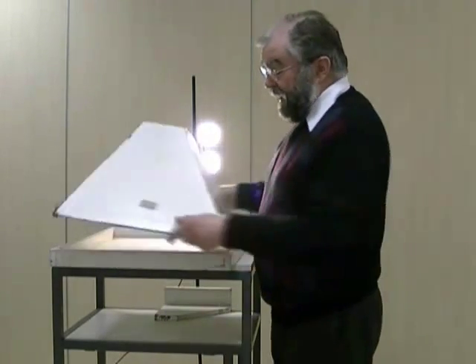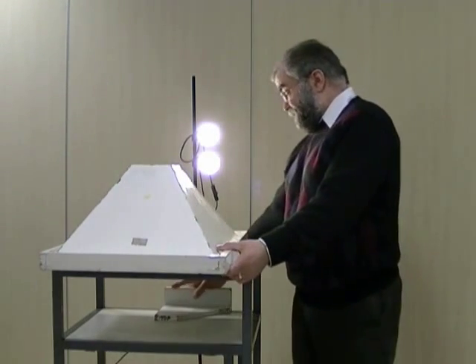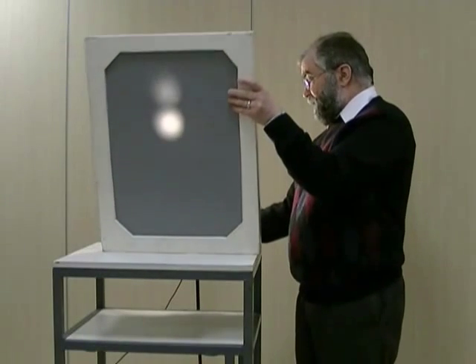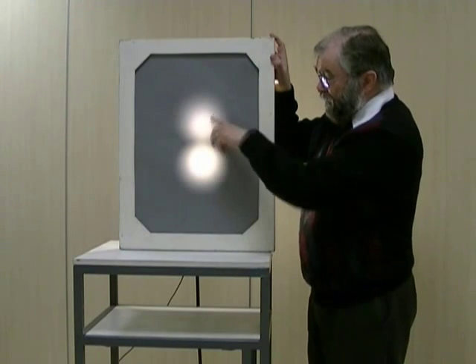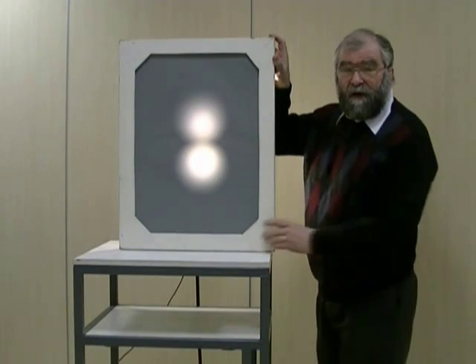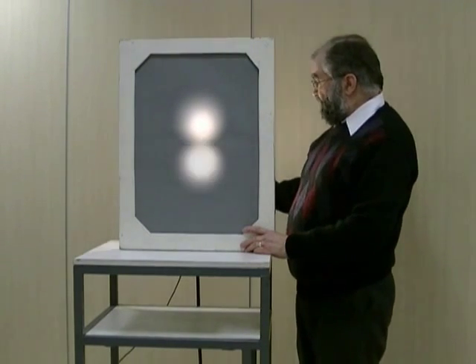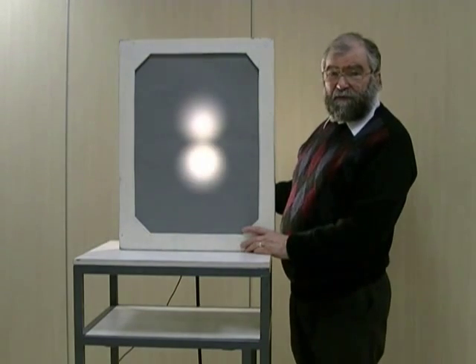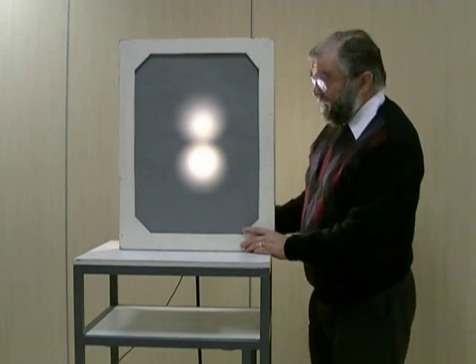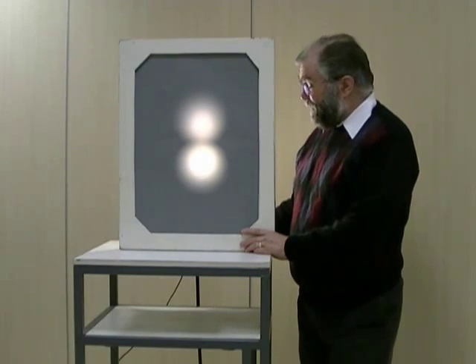If we put our pinhole collimator in front of the screen representing the detector, and put the whole thing in front of our two sources, we do in fact now get an image. You can see two separate parts to the image representing our two sources. And if I turn the upper source on and off, you'll see it's the lower image that flashes on and off, demonstrating that this is an inverted image, as we expect from a pinhole collimator.